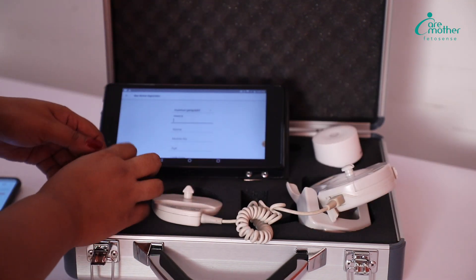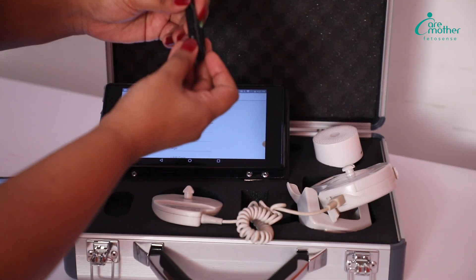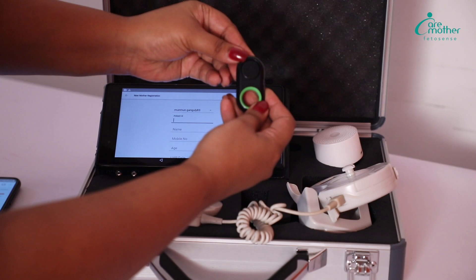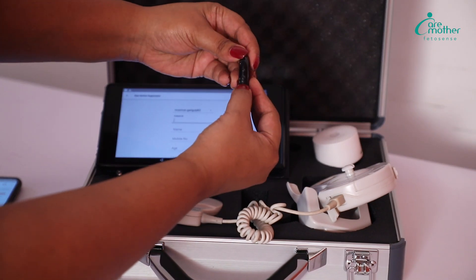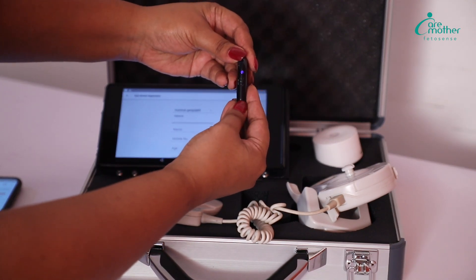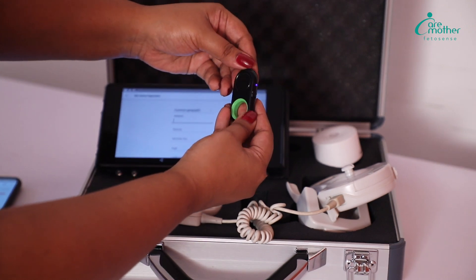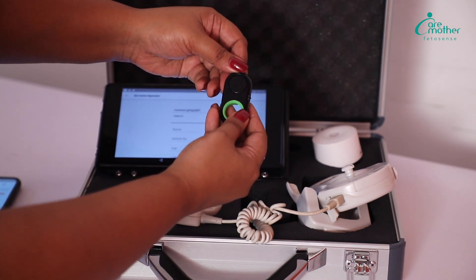The second thing we need to switch on is the movement marker. We slide on the ON button of the movement marker. The blue light comes on and the movement marker is ready to use.